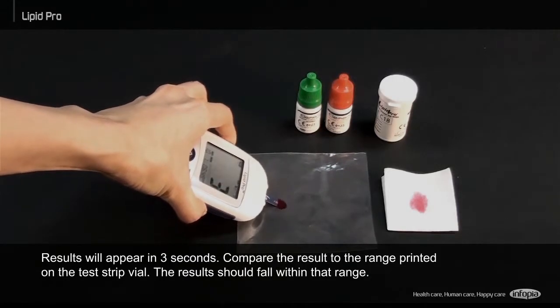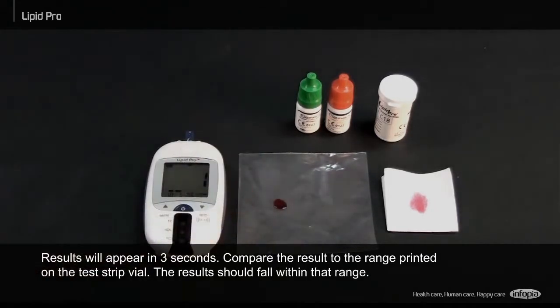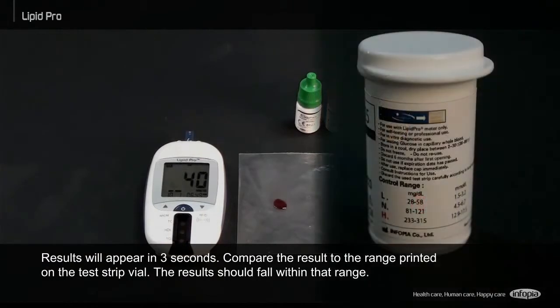Results will appear in 3 seconds. Compare the results to the range printed on the test strip vial. The results should fall within that range.